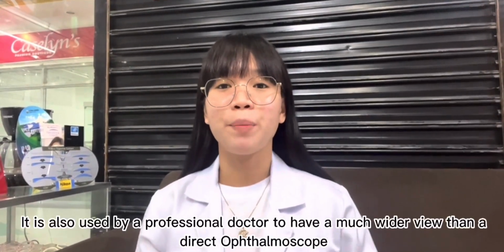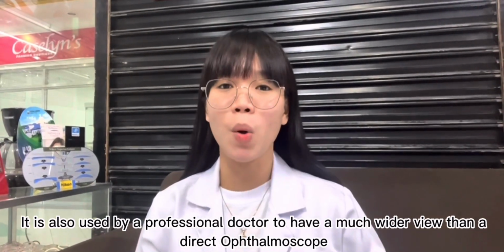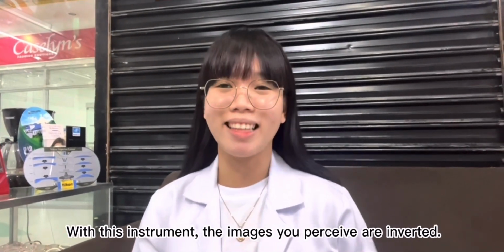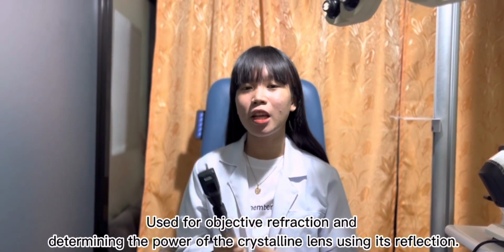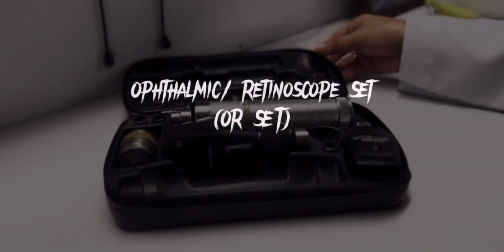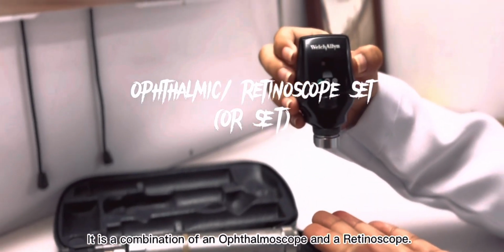Indirect ophthalmoscope. It is also used by a professional doctor to have a much wider view than a direct ophthalmoscope. With this instrument, the images you perceive are inverted. Retinoscope. Used for objective refraction by determining the power of the crystalline lens using its reflection. Ophthalmoscope, retinoscope set, or OR set. It is a combination of an ophthalmoscope and a retinoscope.